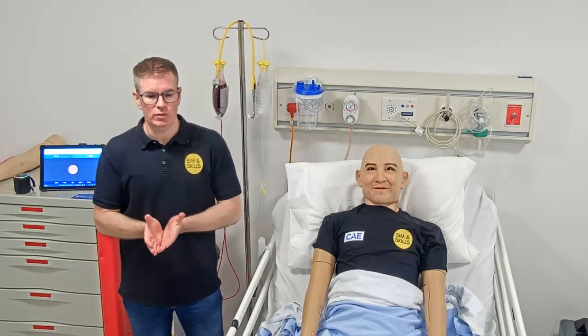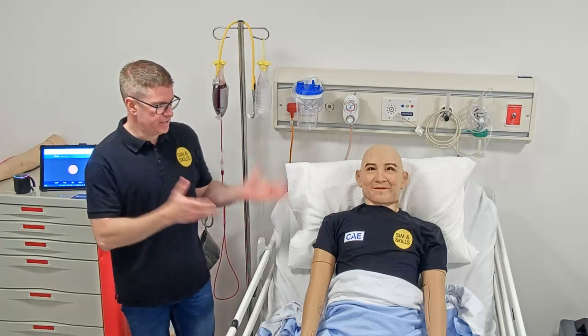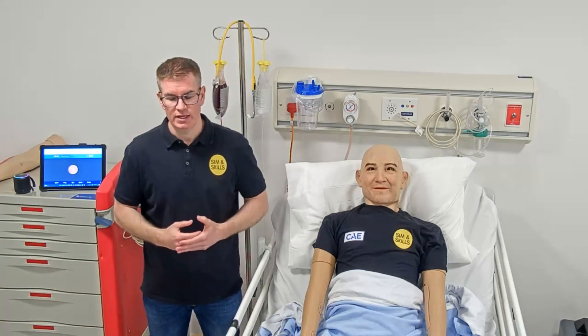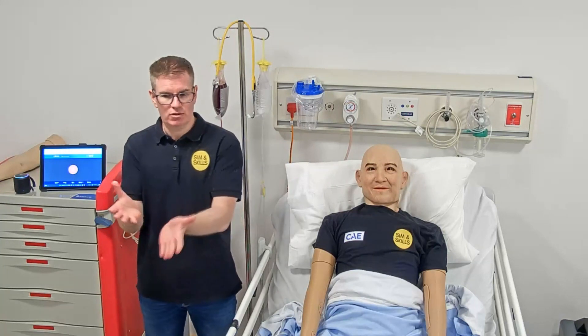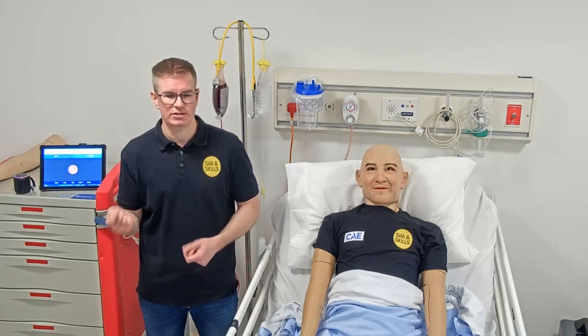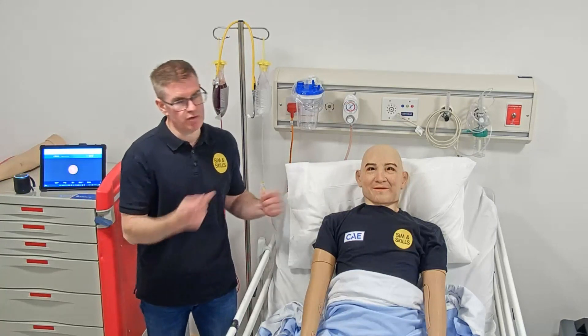As you probably know, patient simulator mannequins are fantastic, but one thing they're not brilliant for is the communication. Generally speaking, what you have to do is either use the pre-programmed conversational sounds from the tablet — yes, no, I'm in pain, etc. — or you might be able to put a headset on and have a two-way conversation with the mannequin.